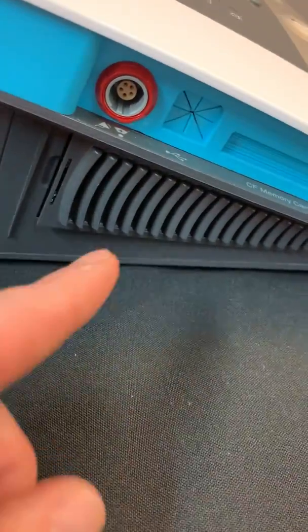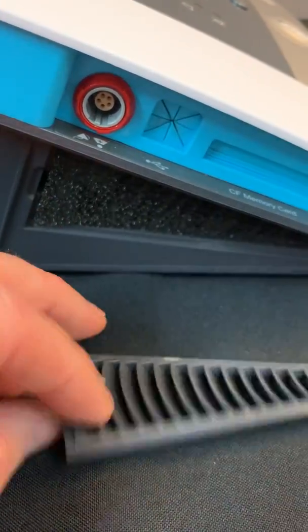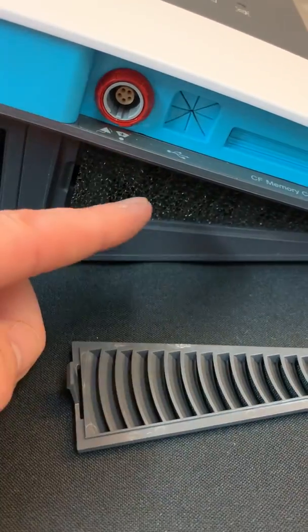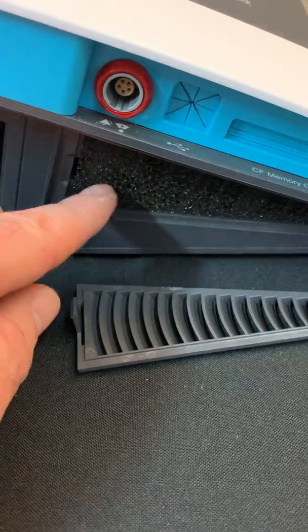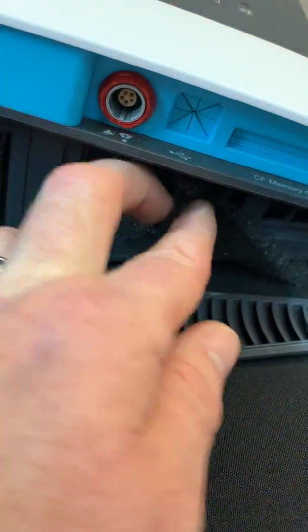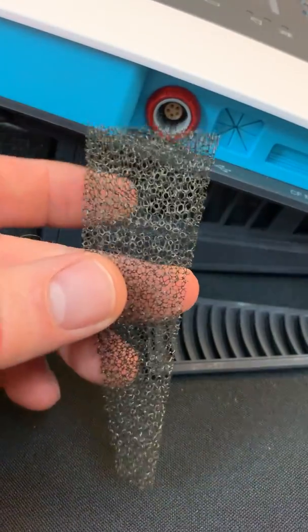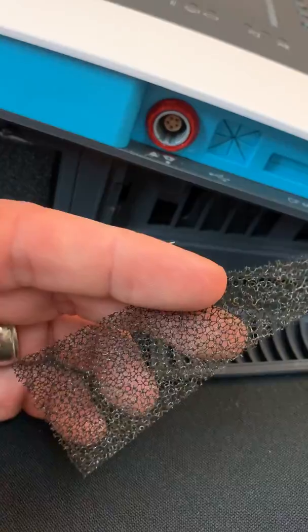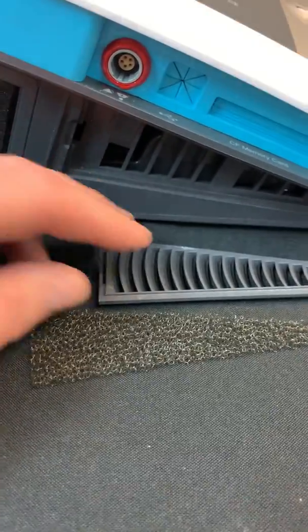This section here is the air cooling inlet, and this also houses a black carbon filter. The purpose of this inlet is to entrain room air to cool the components of the device. Dust will collect on this filter, so you want to make sure that this is also clean. It can also be rinsed and reused, and the recommendation for this filter is also to change every year.